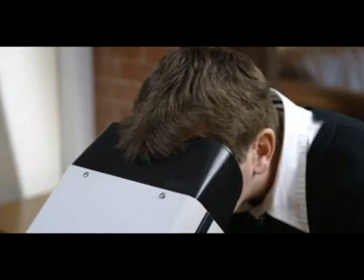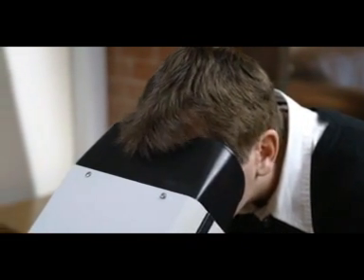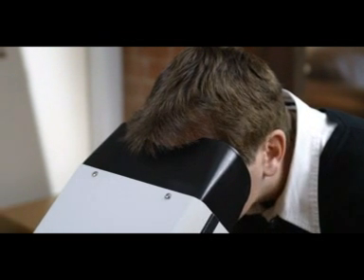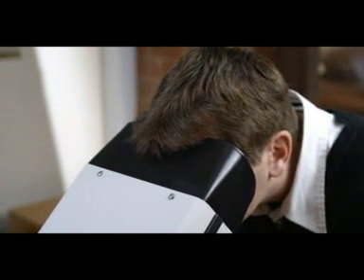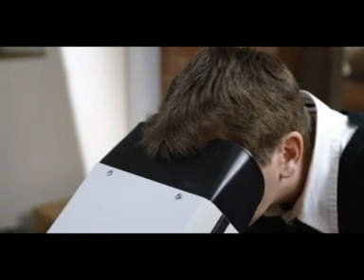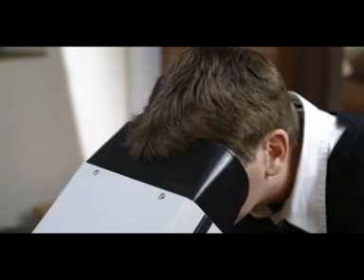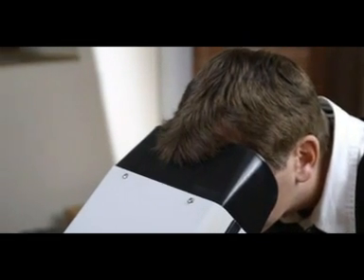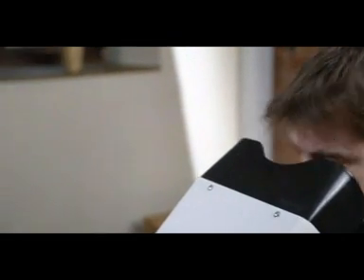For the VS5 machine tests, spectacle and contact lens wearers should use any glasses or lenses normally worn for the distance being tested. For example, if corrective lenses are used for distance, they should be worn for the first test.